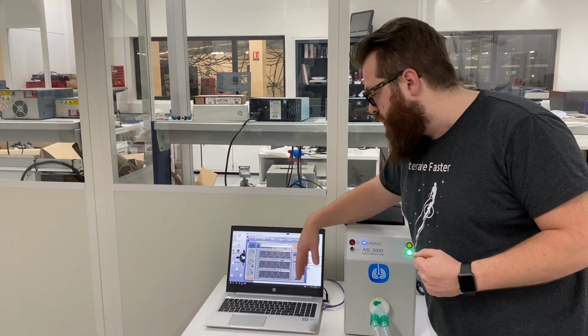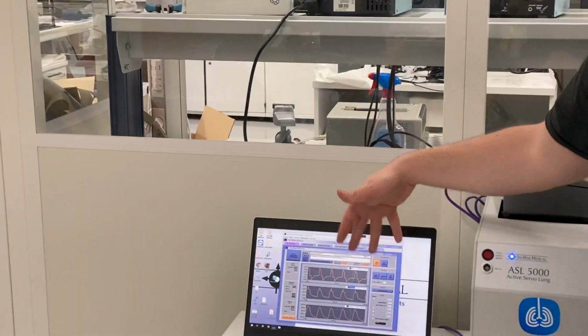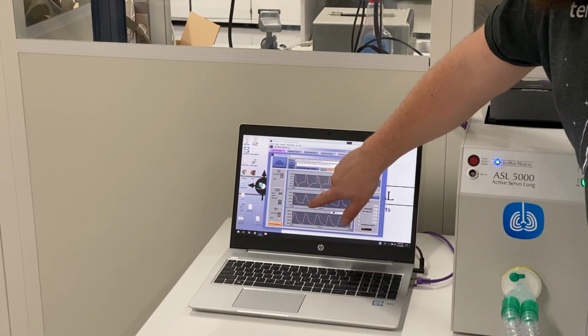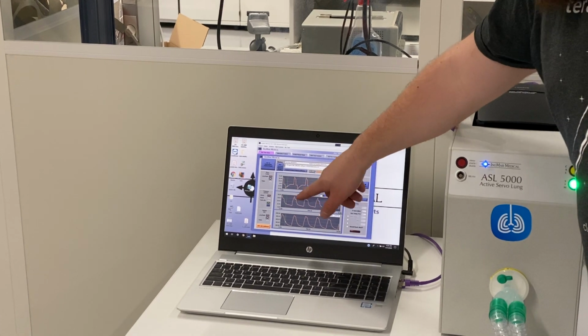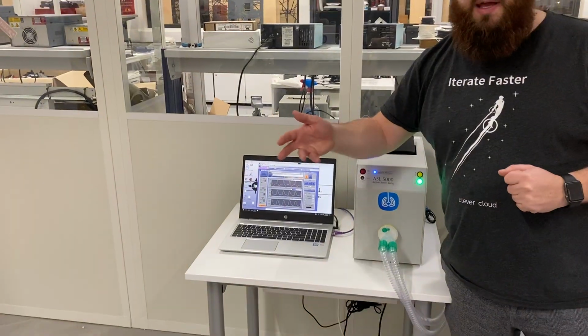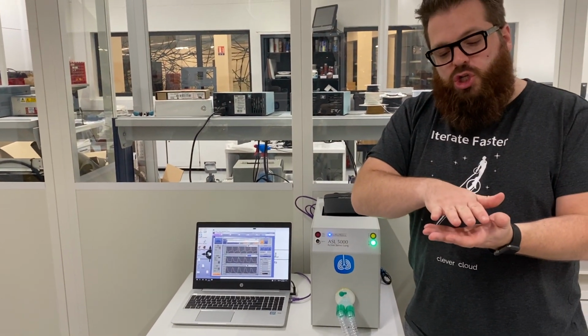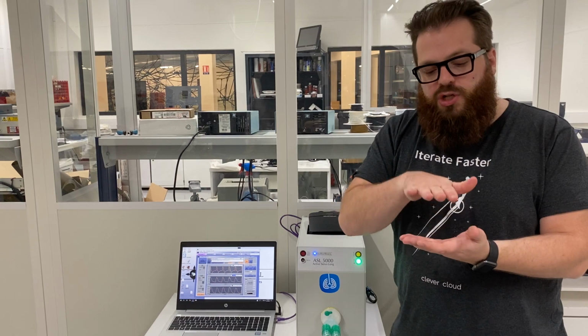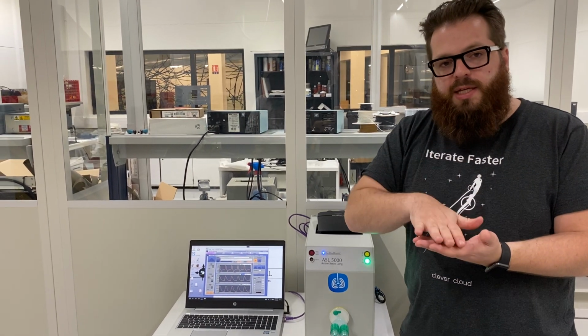And if we look at this, we see that we have exactly the behavior we need from the machine, because we have the good level of pressure, the peaks, the plateau, and the PEEP, which is the positive expiration pressure, a way to make sure that the lung is never fully empty, and we can softly put a little bit of air inside it.